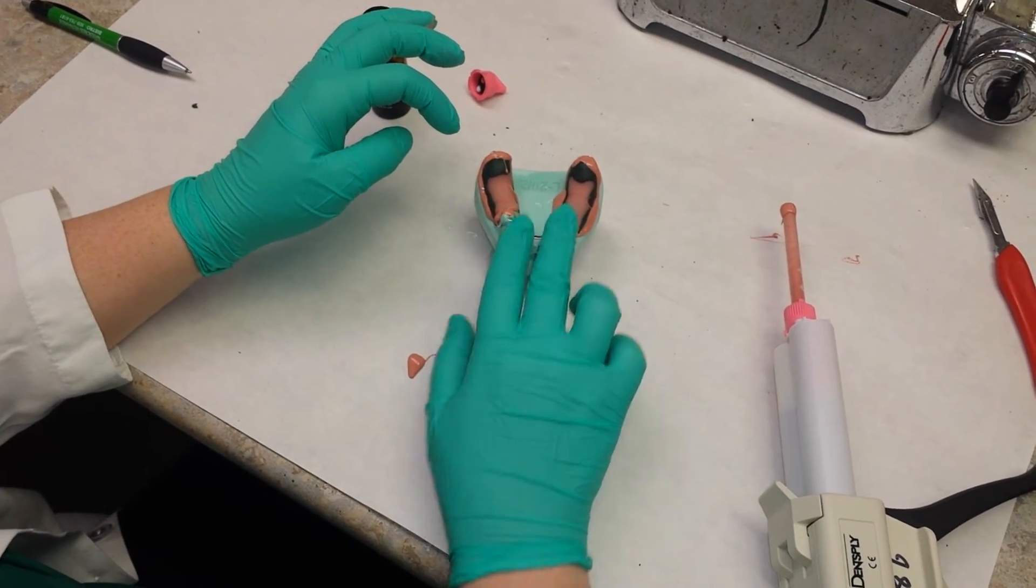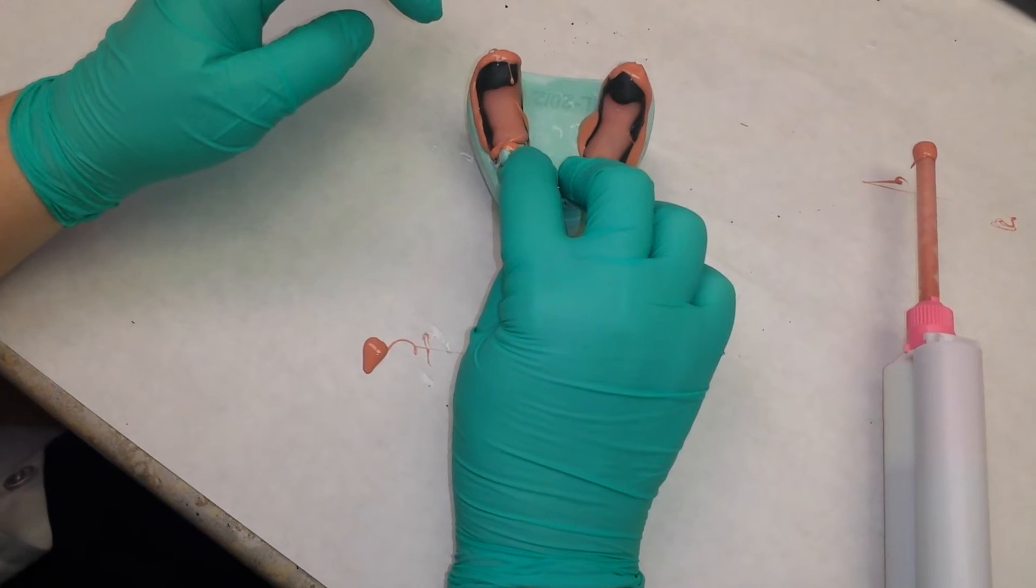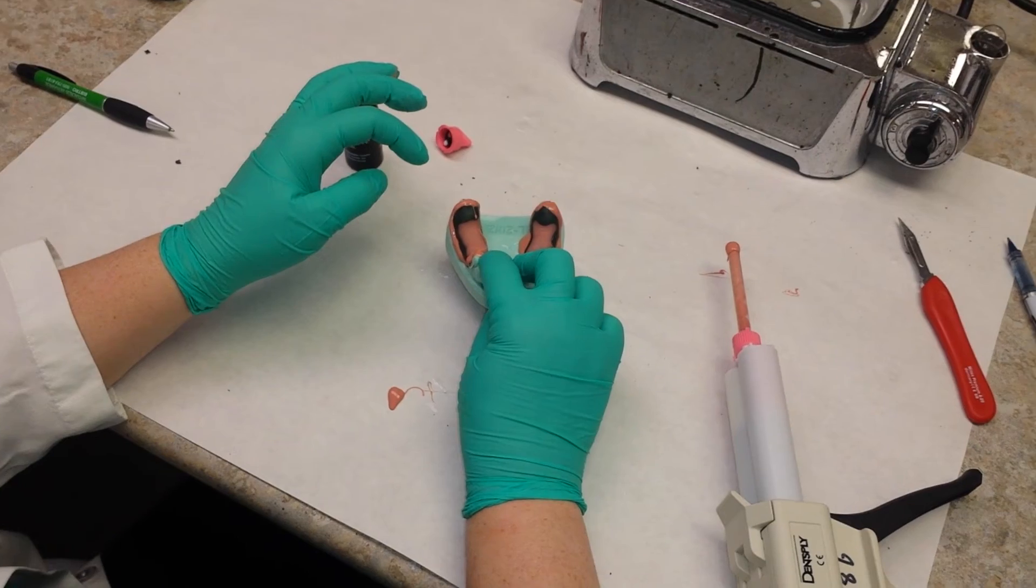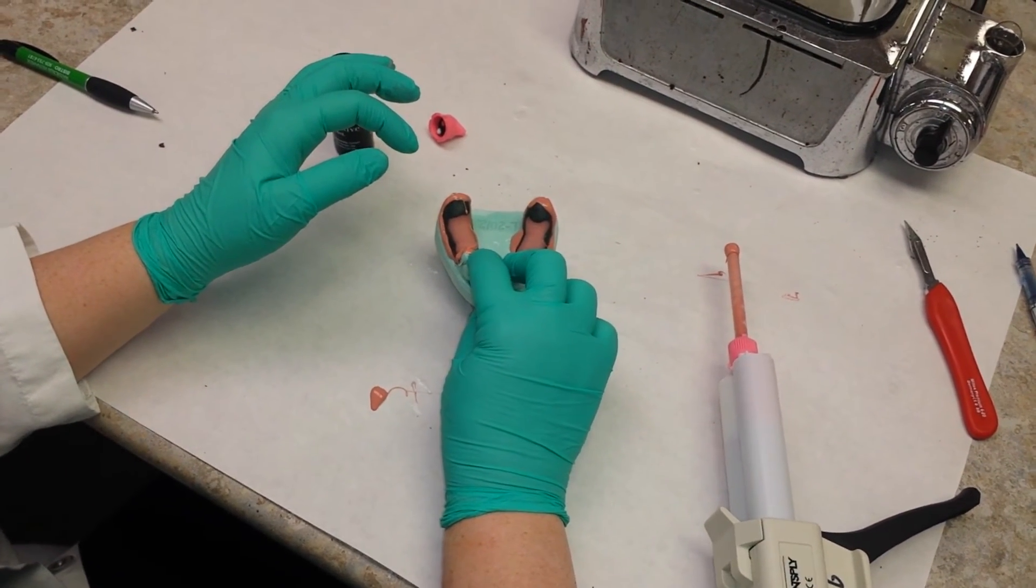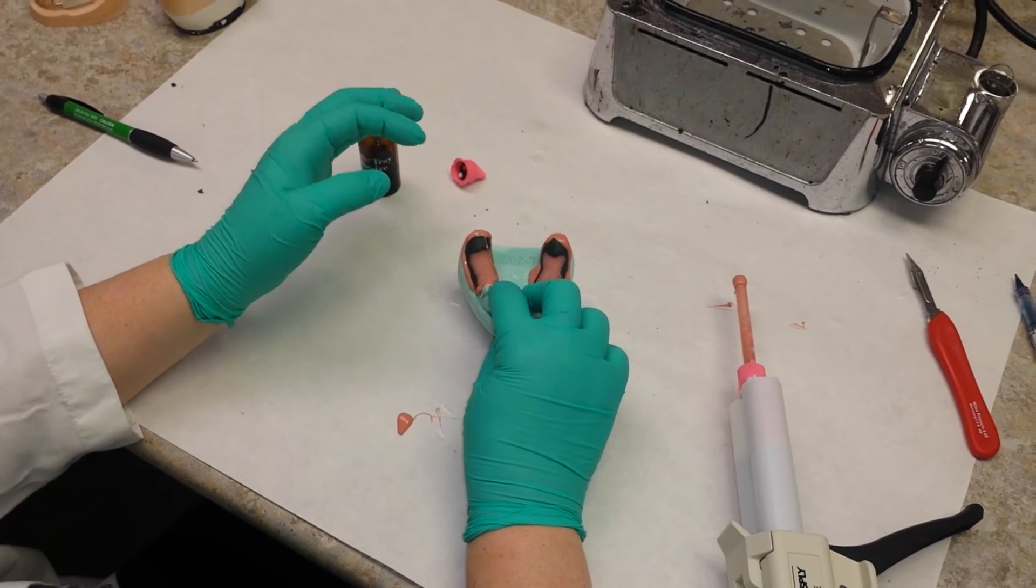You're holding this the whole entire time it's set up. You're holding it right here on these teeth, right on the rest seats. Now here in the lab, obviously you don't have to hold it the whole time it sets up because the patient's not moving. But that is what you're typically going to do in the mouth: hold it until it fully sets up.